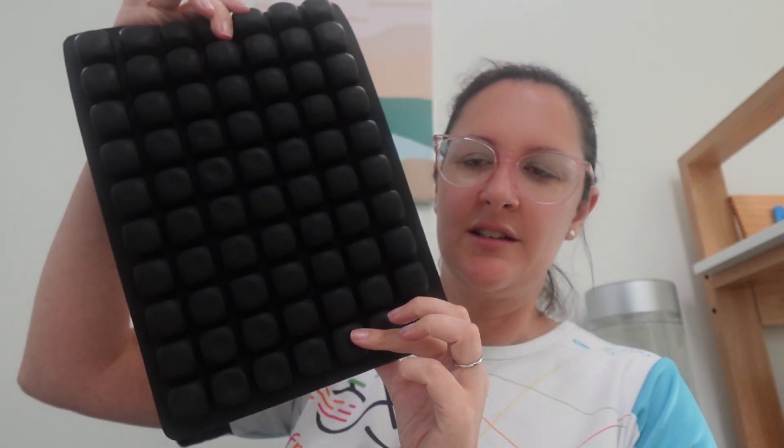That's an example of where I used these recently to assist someone who needed some extra pressure relief — I could cut it to size and make it suitable for those needs. Roho adapter pads are about $350 for this size section, available from wherever you would normally source your Roho and other products from Permobil.